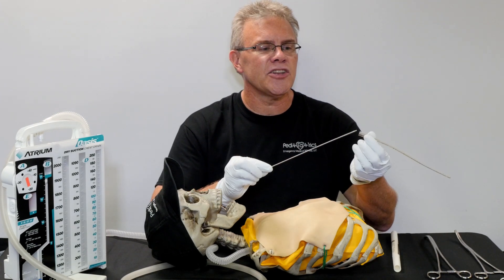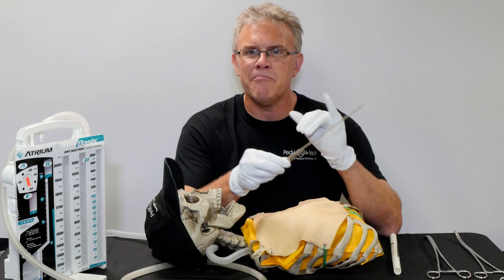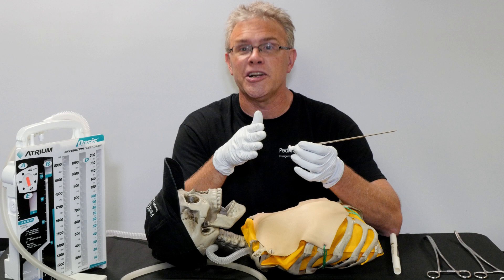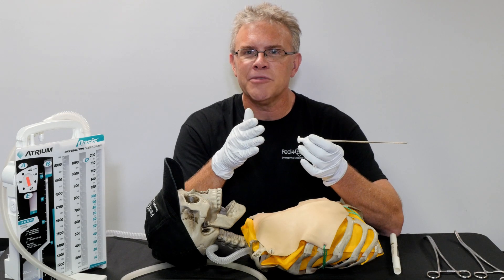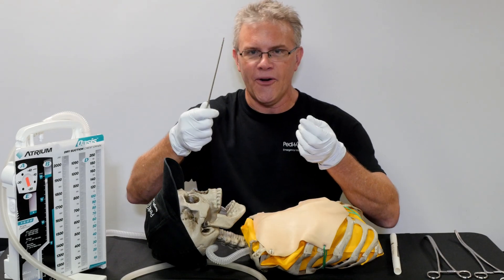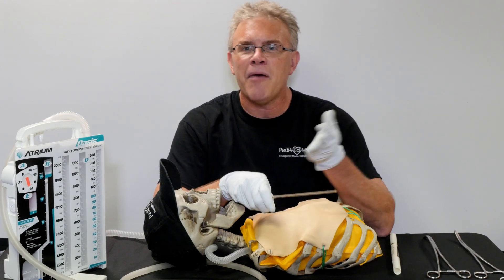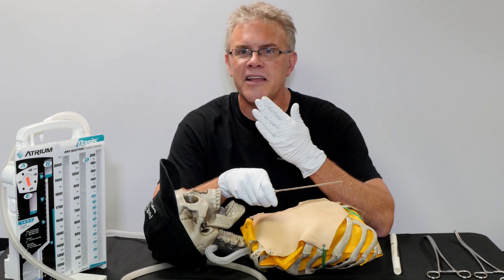Because this is a little kid chest tube. But remember, on the big people side, it was the size of somebody's middle or little finger. This is when the doc would look at your patient who just got shot in the chest and say, quote, you're going to feel a little pressure while I do this. What was far more appropriate is: I'm about to put a javelin into your chest. Because in one hand, they would take the spear, line it up to where it had to go, and push until they felt the pop — through the skin, through the muscle, and then into the pleura.